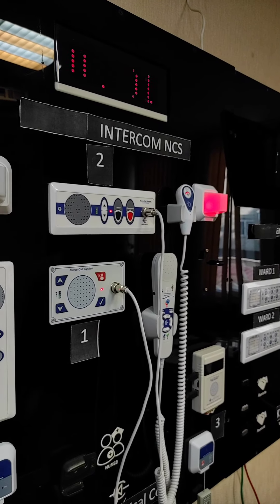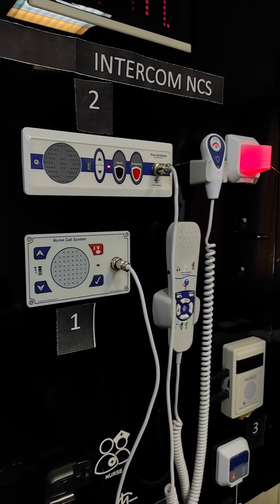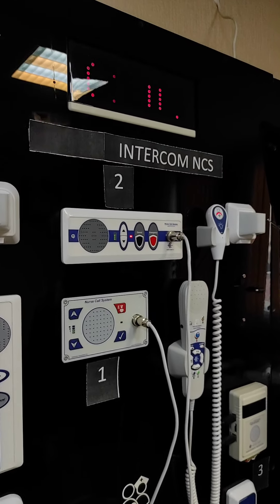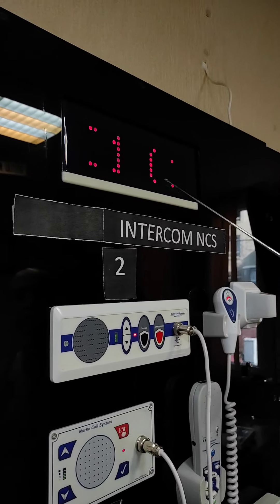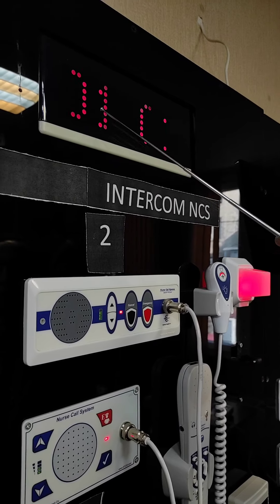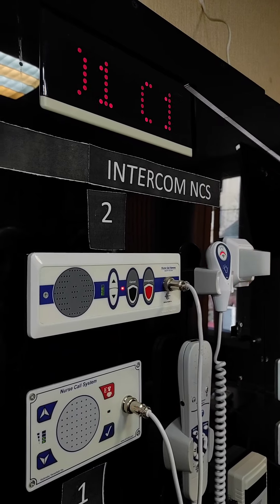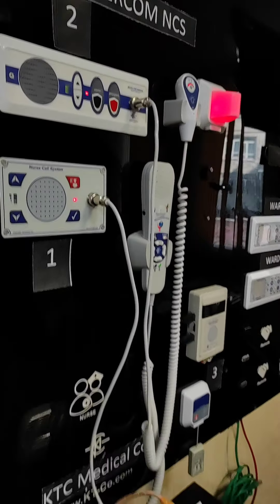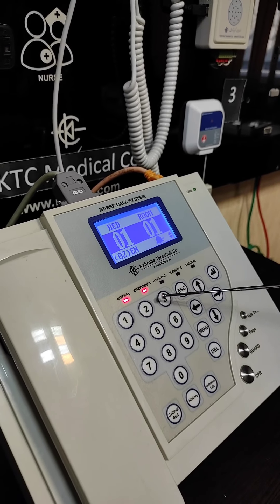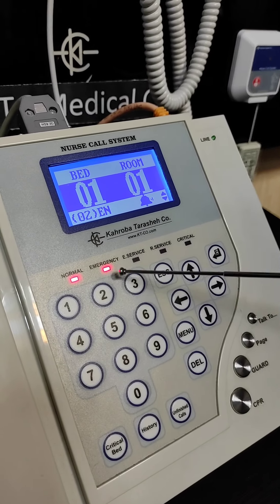The acoustic chime changes, and the over-door lamp also changes to blinking red, meaning that there is an emergency call. The display also overrides room number one, bed number two to show room number one, bed number one — which means this call has higher priority. The staff console also shows room number one, bed number one — emergency — blinking, meaning that the staff should pay attention to this call first.